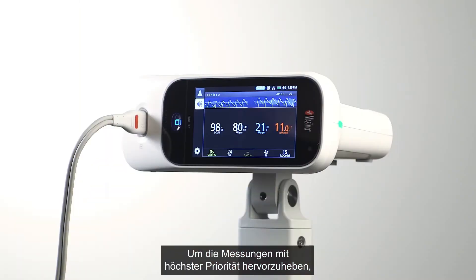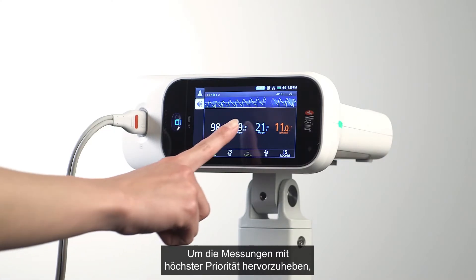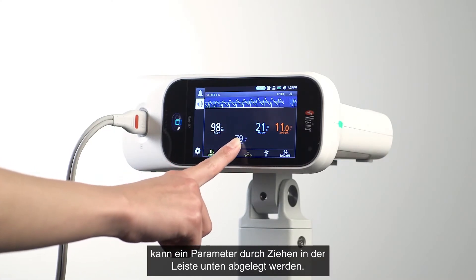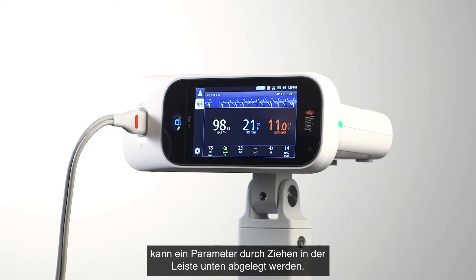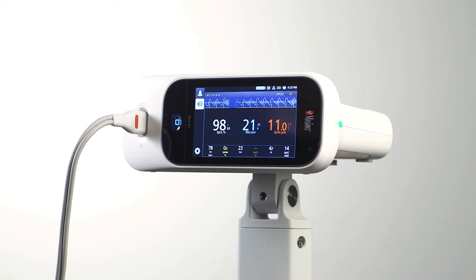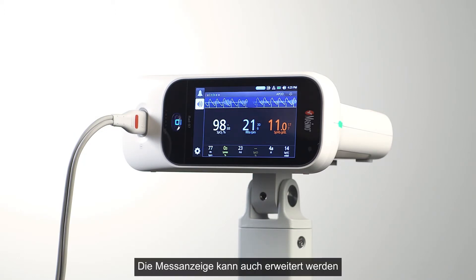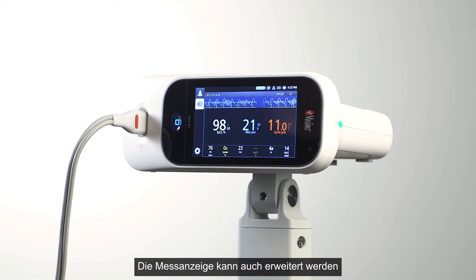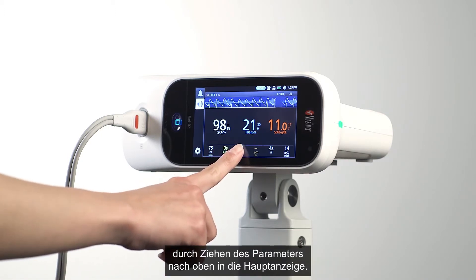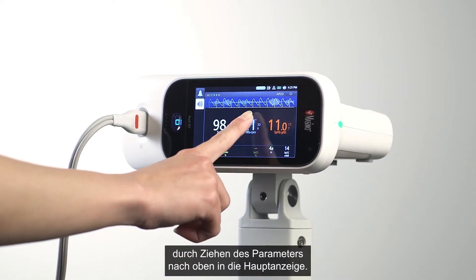To prominently display the highest priority measurements, clinicians can minimize a parameter by holding and dragging the parameter into the well. Measurements can also be expanded by holding and dragging the parameter up to the main display.